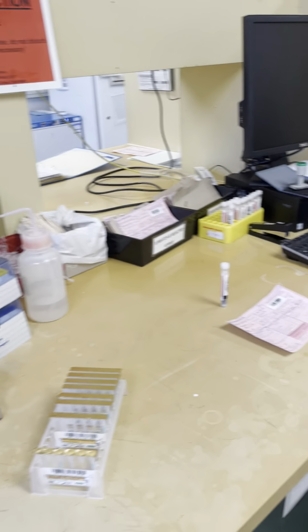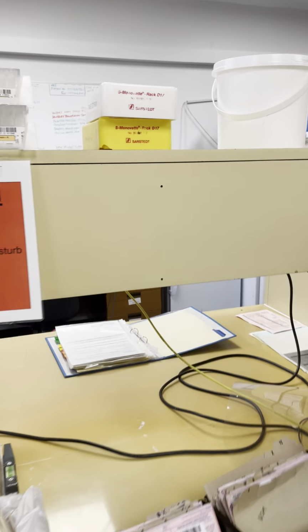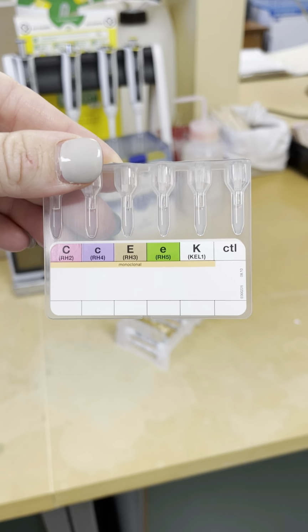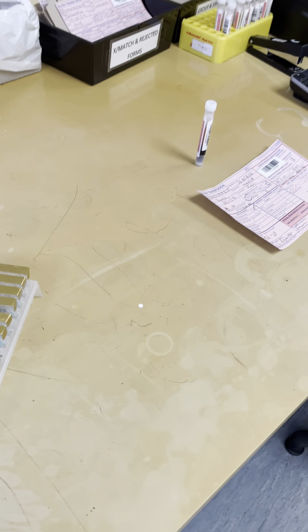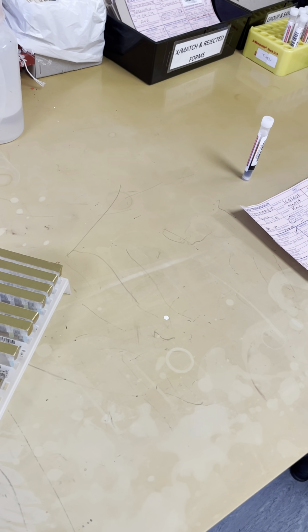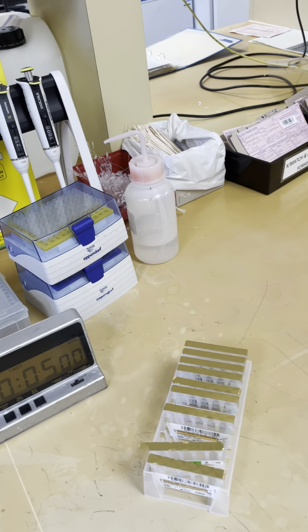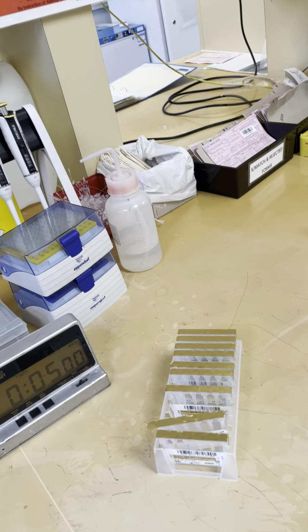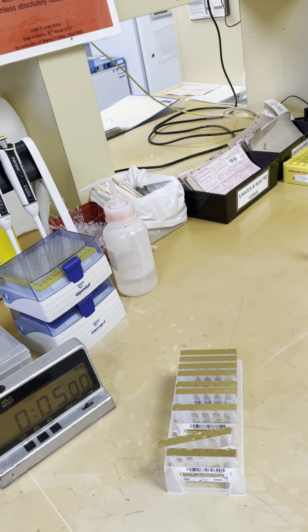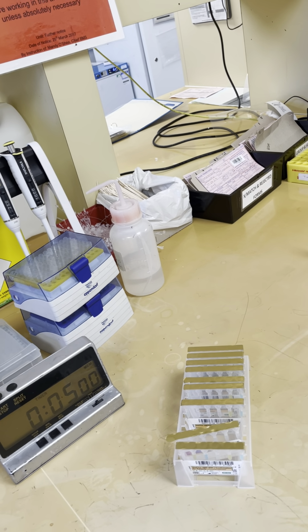So we also have RH phenotype cards. Just see if they are up here. So these are our RH phenotype cards. And we would perform these in cases where a patient has an RH antibody, and we would obviously give them phenotypically matched blood if they've already developed one of the antibodies.